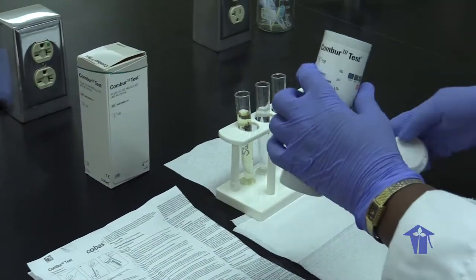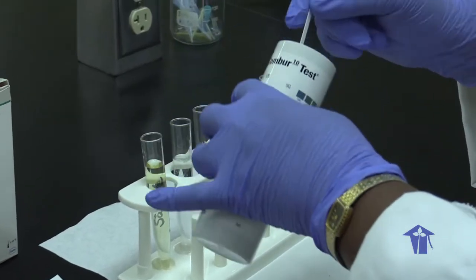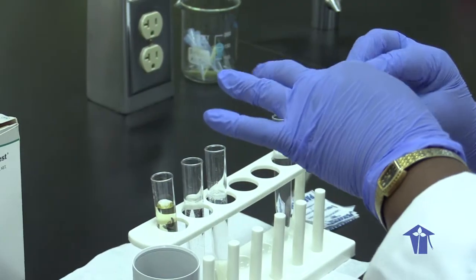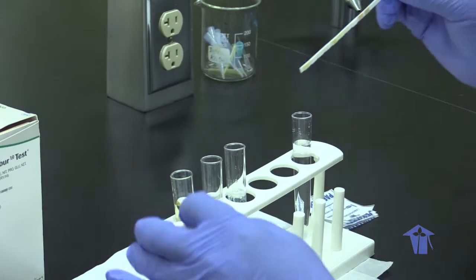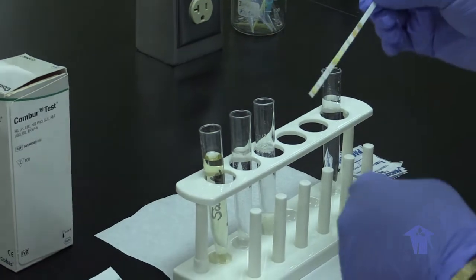First thing, you remove your dipstick from the container. Make sure that the container is closed back immediately because air affects the readings.